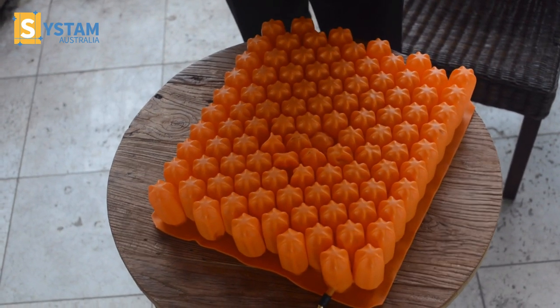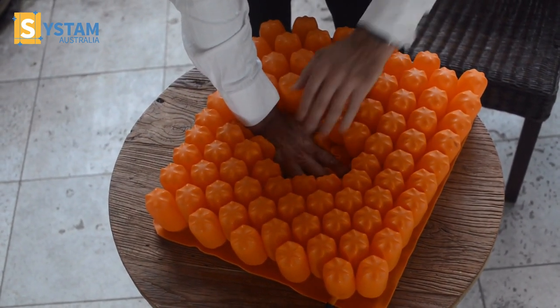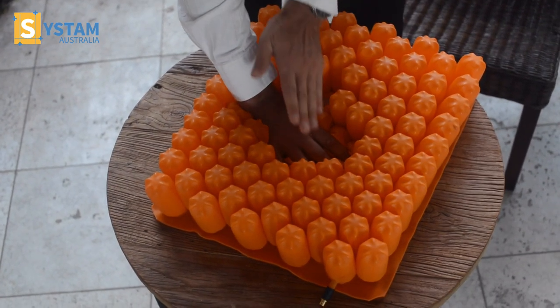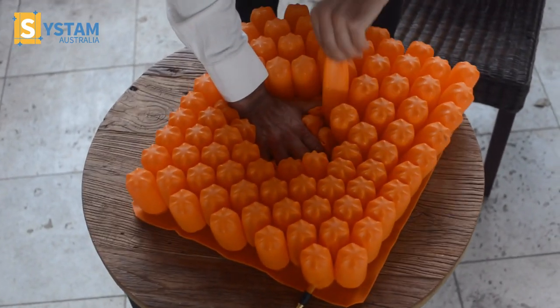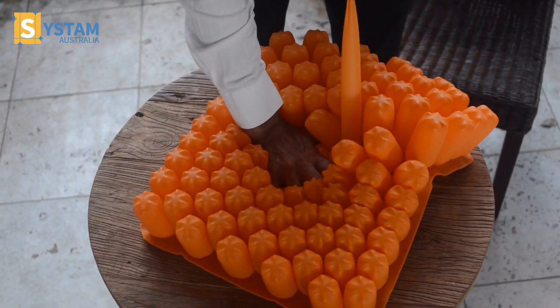They're made of laxpreen and this material is 14 times stronger than neoprene. It's made in-house and it's a patented material. It gives it lightness and it gives it flexibility — all important when you're taking the shape of a person's bottom.